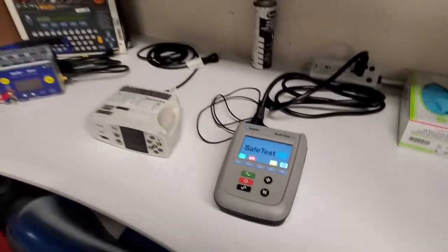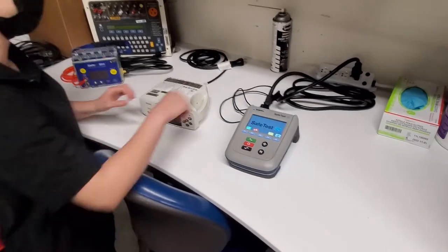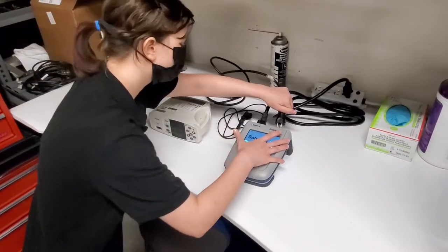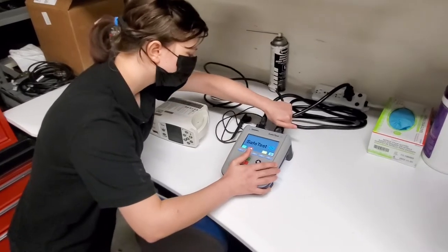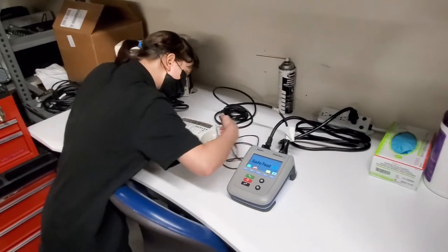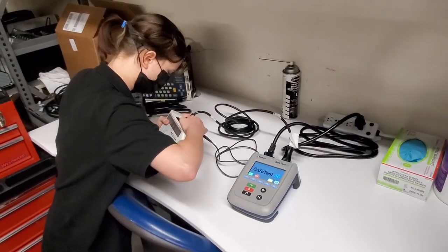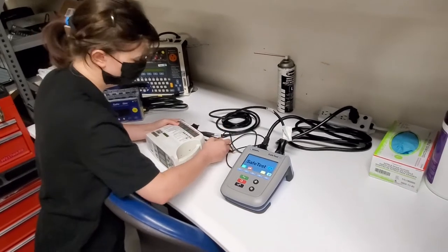So let's go ahead and let's see how you do. Let's go ahead and hook it up. That being said it should have a zeroed out probe already. I've used this thing all morning long and it has been a fantastic little device.